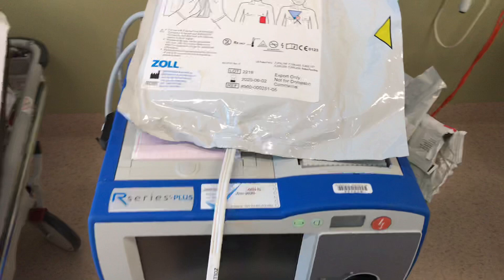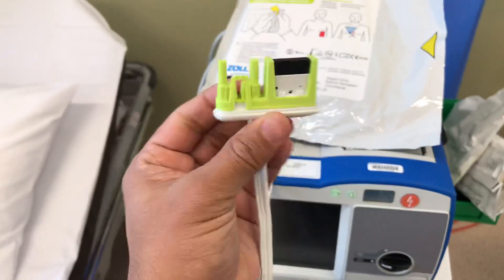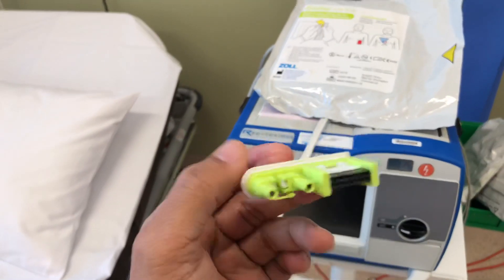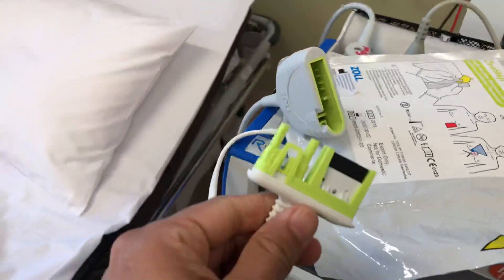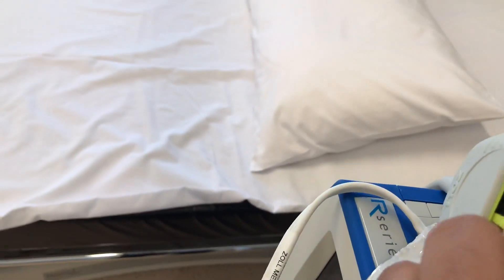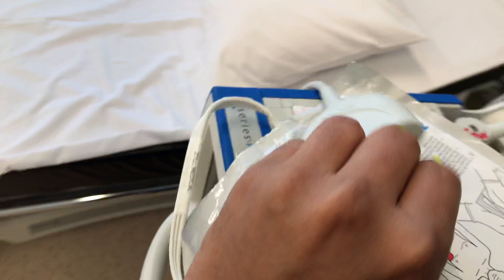I have given a bit of orientation with the test pads for those who have already attended the ALS testing with me. This is how the other end of the pad looks like. So this goes into — into there, like this — make sure it's clicked in, single-handedly it's not easy, but it's been clicked in like this.